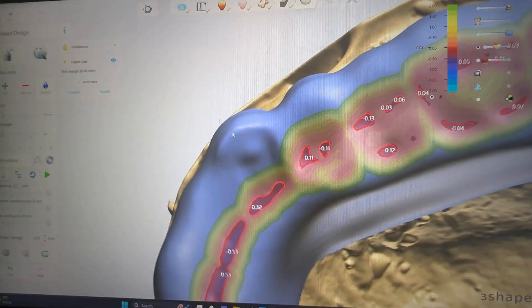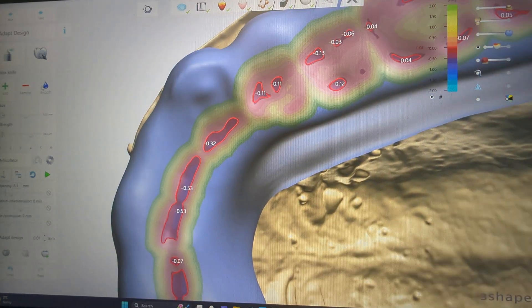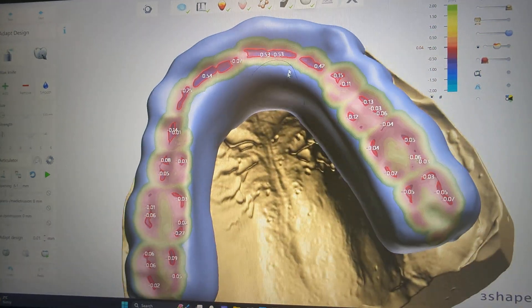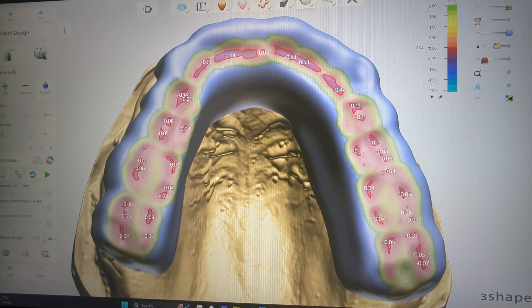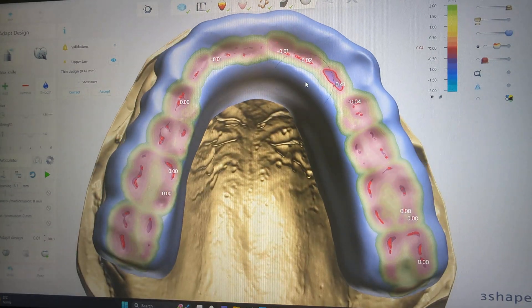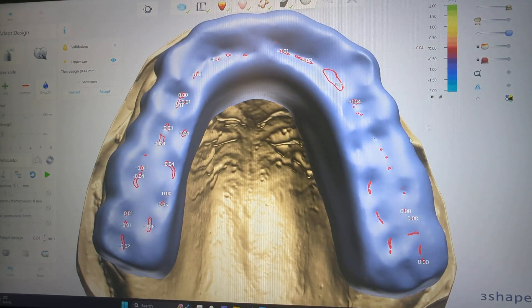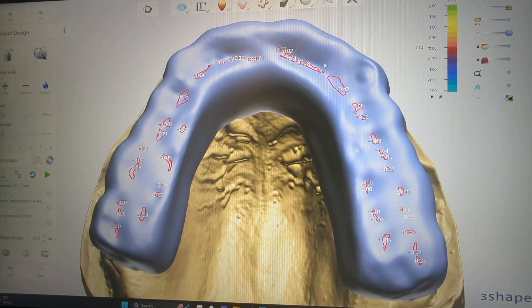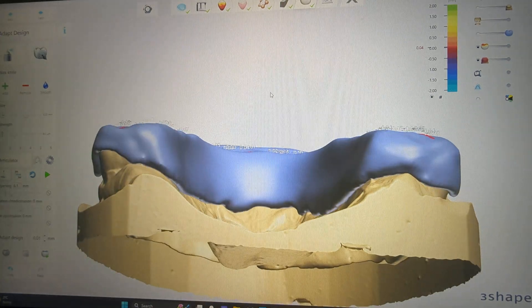It says I have a little hole — it's probably on that cuspid. See the area of concern. You can do two things: you can add a little bit and it goes away, which is probably the better way to do it, and then smooth it before the error shows up. We're going to run our excursions one more time just to make sure they're all good and clear. We do have a spot here — smooth that first, it just seemed to push the material a little bit. We're going to remove this, clean that up, correct any validations. Let's just add a little bump and we're good to go.